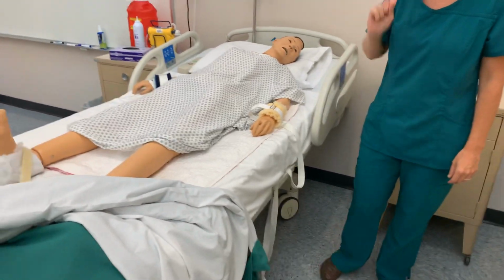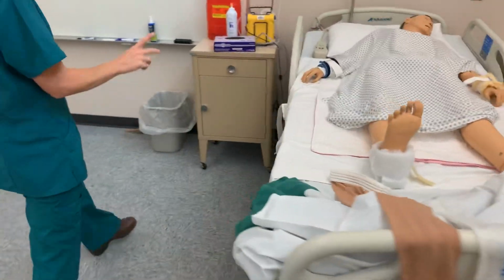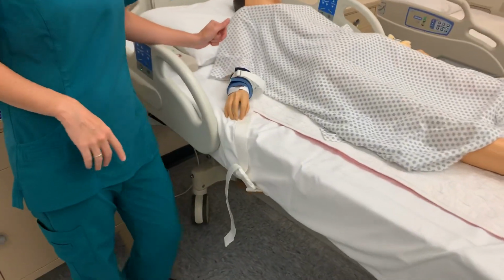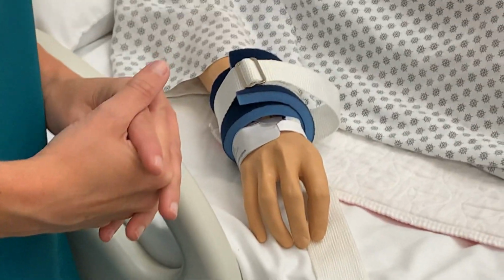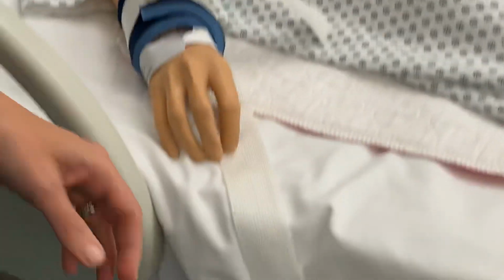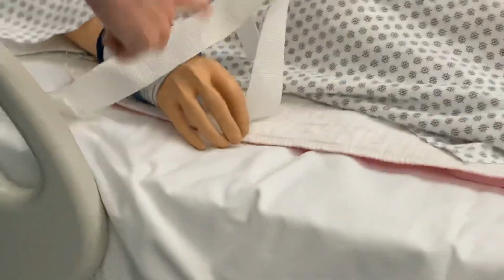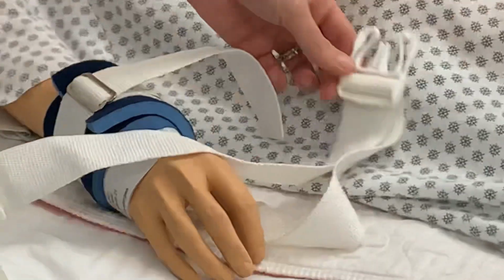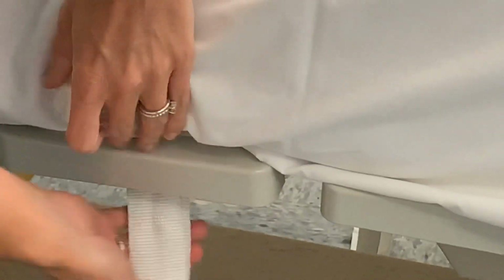We're going to go to the other side of the bed to look at a different type. This is actually what I have been seeing in more facilities now if they use a protective device. And the thing is, you don't see protective devices used that often. Here you have foam. Still I can fit my finger underneath there, so I can adjust that. But you'll notice here, it just has a little buckle attachment, see? So let me make sure you understand what's going on. This part is attached to their wrist. It could also be used around their ankle. Same thing though, right here, and I'm going to undo this so you can really see what's going on.